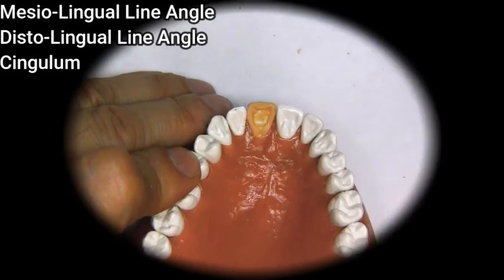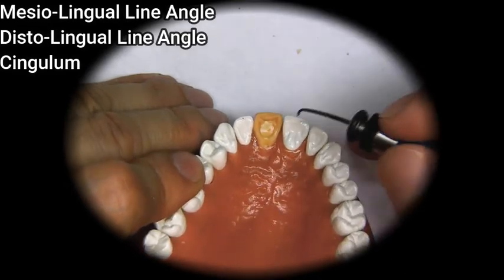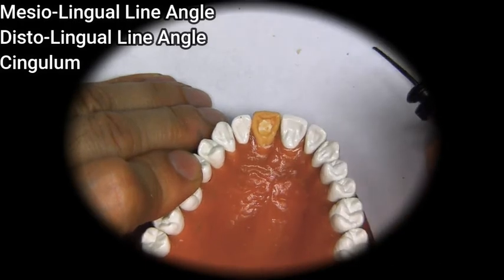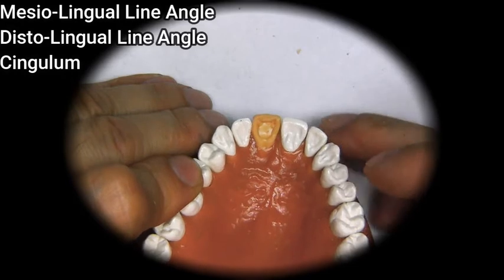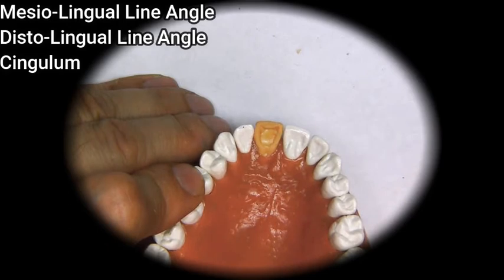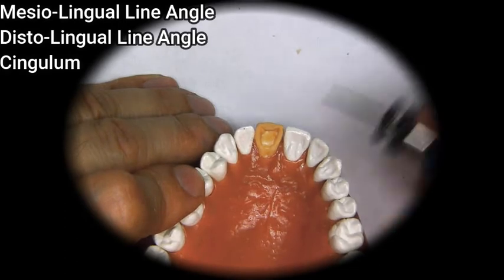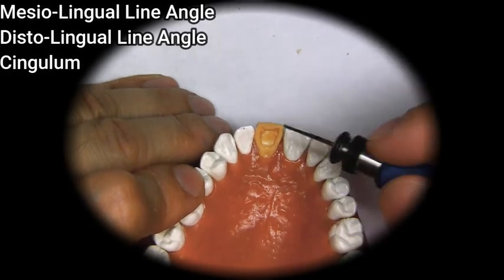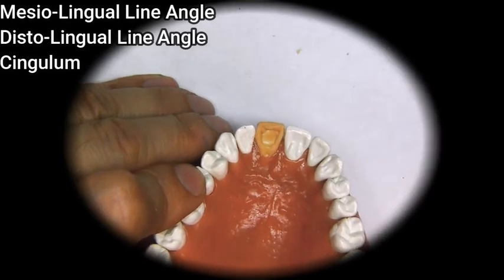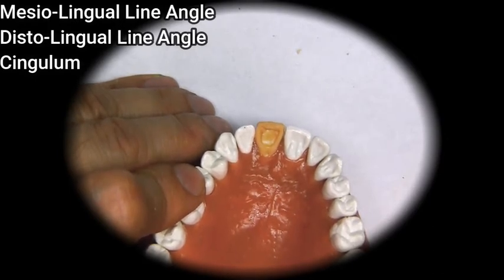It is very important that when you wax the marginal ridges, they be on the same exact level with the adjacent teeth. If they are not, the patient will feel with their tongue some unevenness, and as a reflex their tongue will go there and it will be uncomfortable for the patient, and they will come back complaining of discomfort. Sometimes they won't even know what the discomfort is, but they just know that something is not comfortable for them.